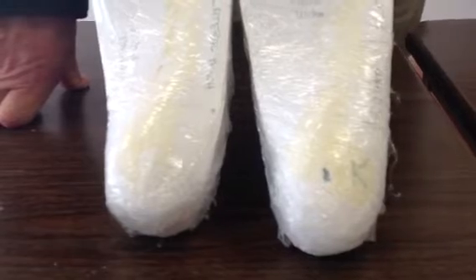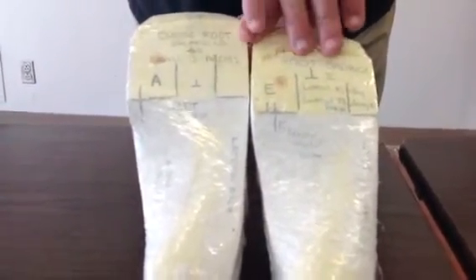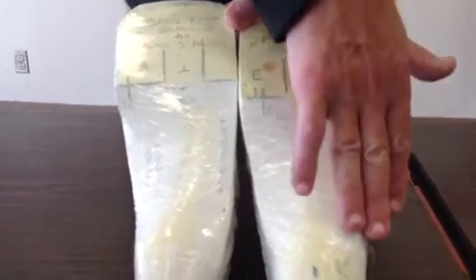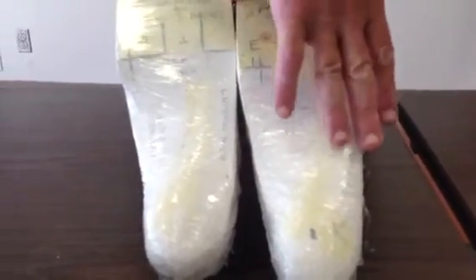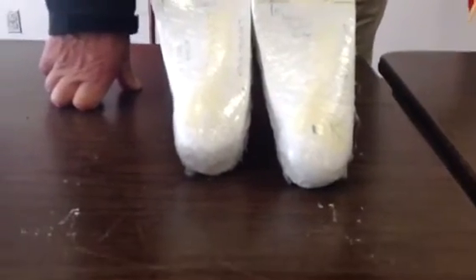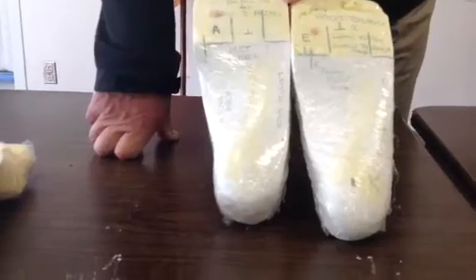So type E of my multiple cast corrections is a Root balance, plus a lateral Kirby skive, plus a lateral flange — what we call a lateral column correction — where you're using whatever you have laterally to get an orthotic that grabs the foot better.